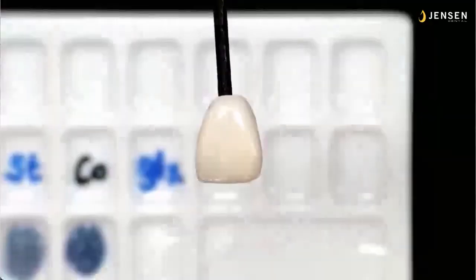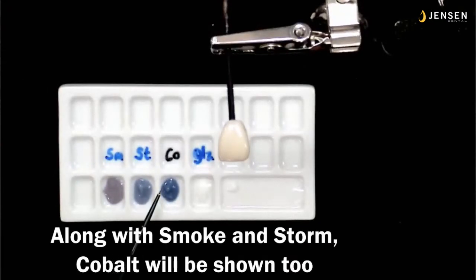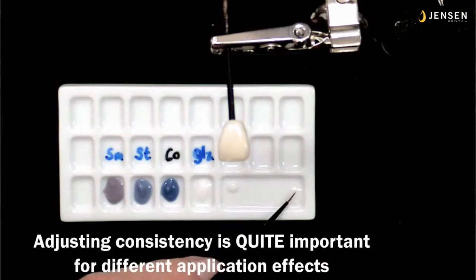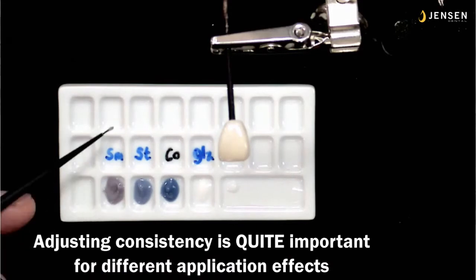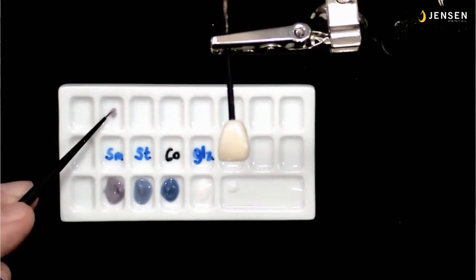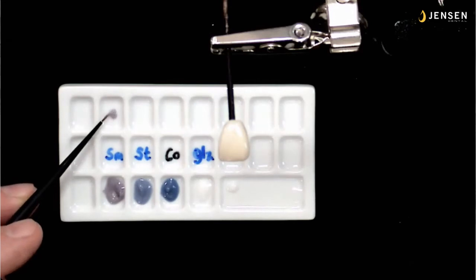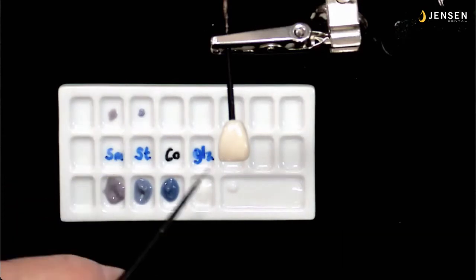So here again is one of my zirconia restorations as sintered, and it's held in my fly tying vise right there. And along with smoke and storm, I'm going to show cobalt too, because cobalt's actually the next progression up. So adjusting consistency is quite important for different application effects. So I'll get a little bit of smoke and just a little bit of liquid, and I'll thin it down because, as it comes from the jar, even though it's properly mixed, it's kind of like thin peanut butter. It doesn't want to flow off the brush real easily.